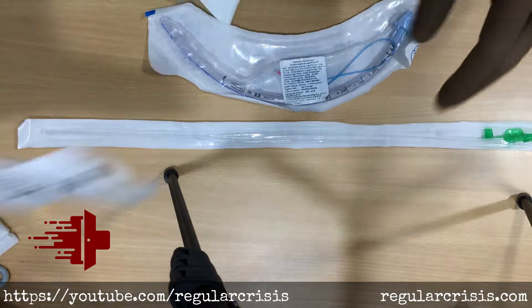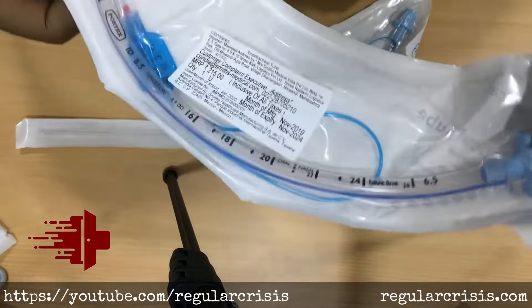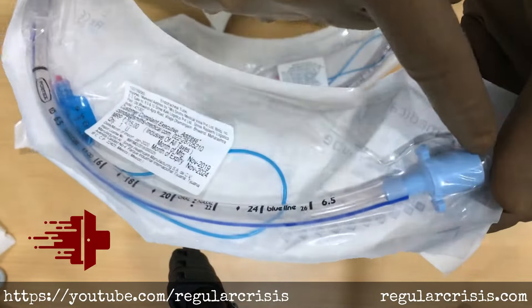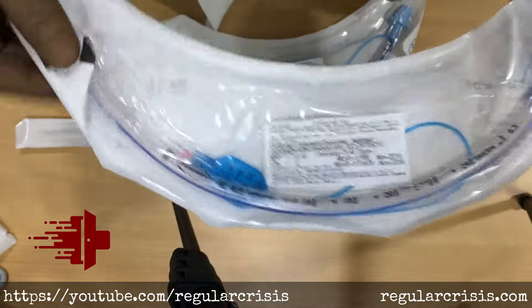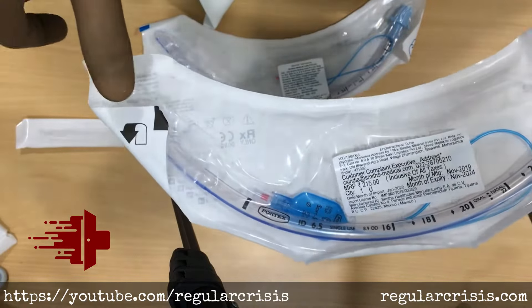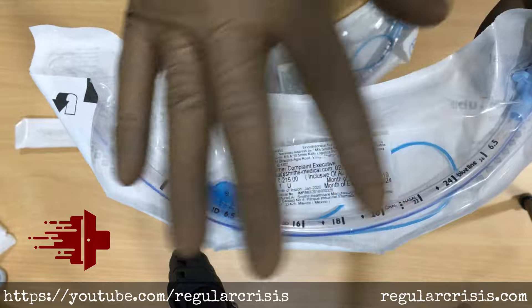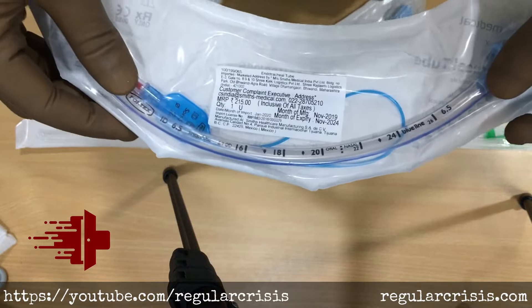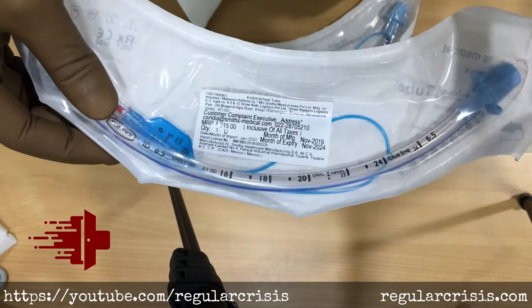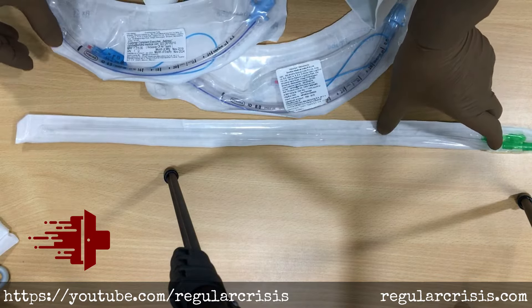Here I have a size 6.5 endotracheal tube where the length differs — markings go up to approximately 30 centimeters. Adding 5 centimeters for the distance to the carina gives an effective length of 35 centimeters. So for a smaller tube, you should insert the catheter up to about 35 to 36 centimeters, leaving a little more of the catheter outside.